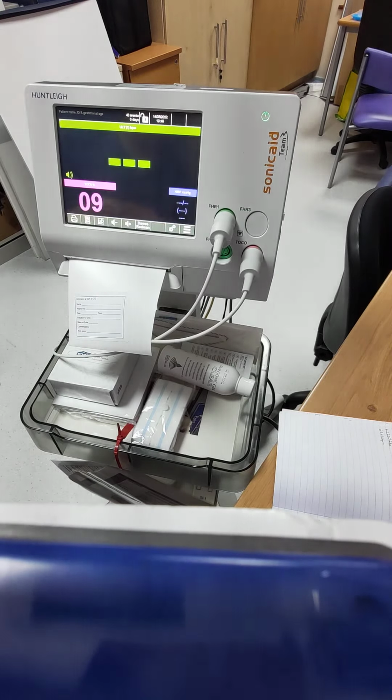Hi everyone, this is just a really quick video just to demonstrate how to use our CTG machines. We need to all watch these so that we can tick the box to make sure that we're meeting our Ockenden requirements and to show that everybody's having some CTG equipment training. This is one of the machines that we use at Worthing. It's one of the Team 3 machines.